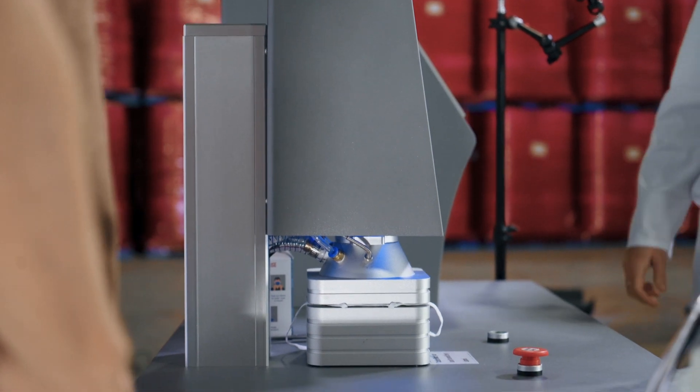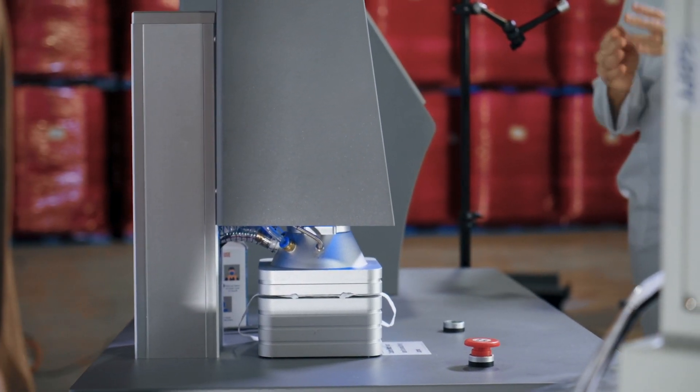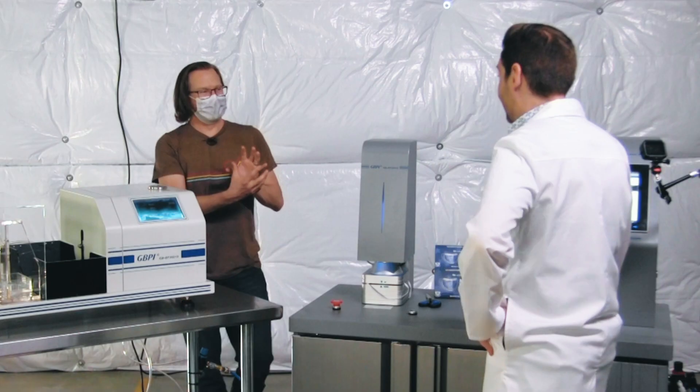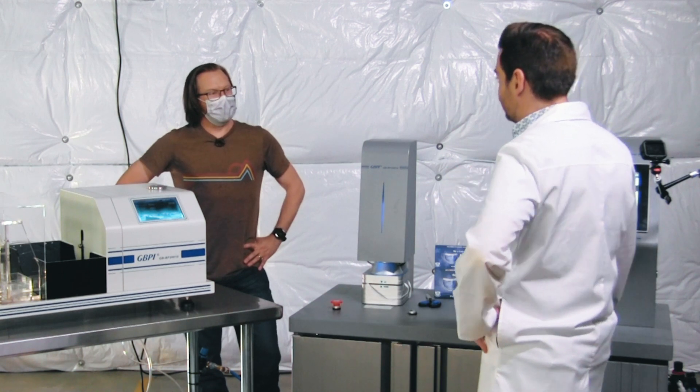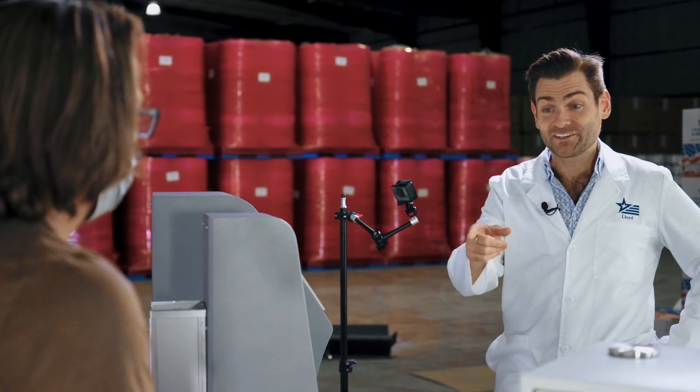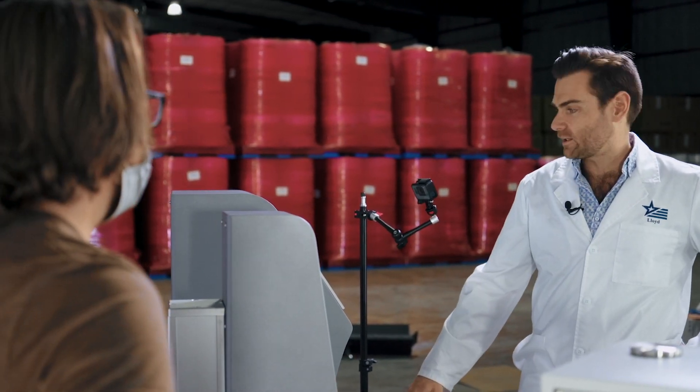All right, let's do this. Let's see what it says. All right, again, it's going to reset. There is something else going on here. To get that structure, like I said, the only difference is that structure. And funny enough, do you know what the material is made out of? No, it's actually cotton. Oh, is it? Yeah. Yeah, it's a structured cotton that we heat, and then that's what gives it that structure.